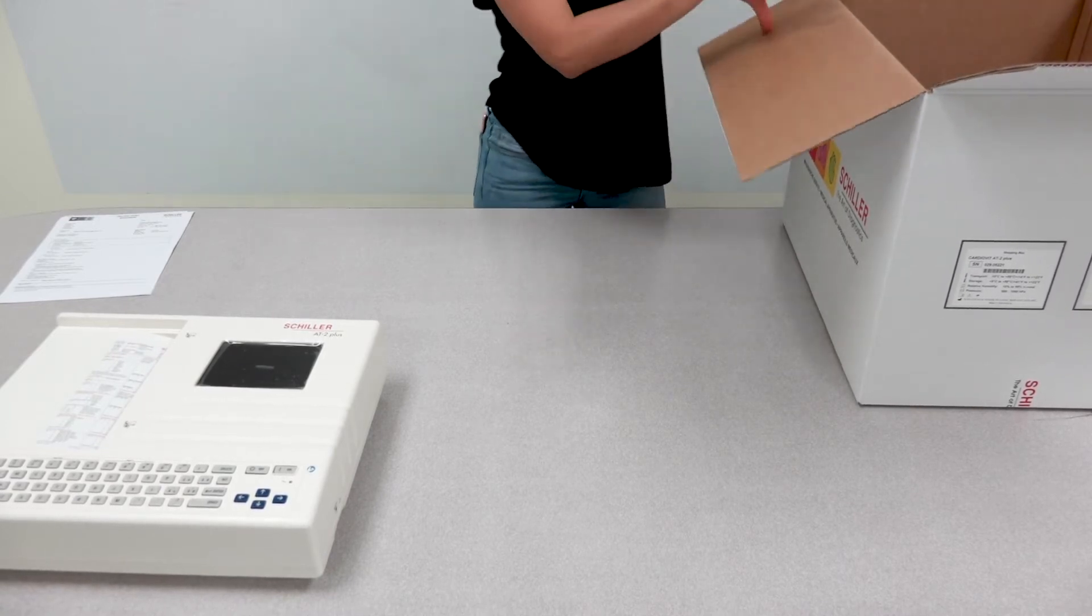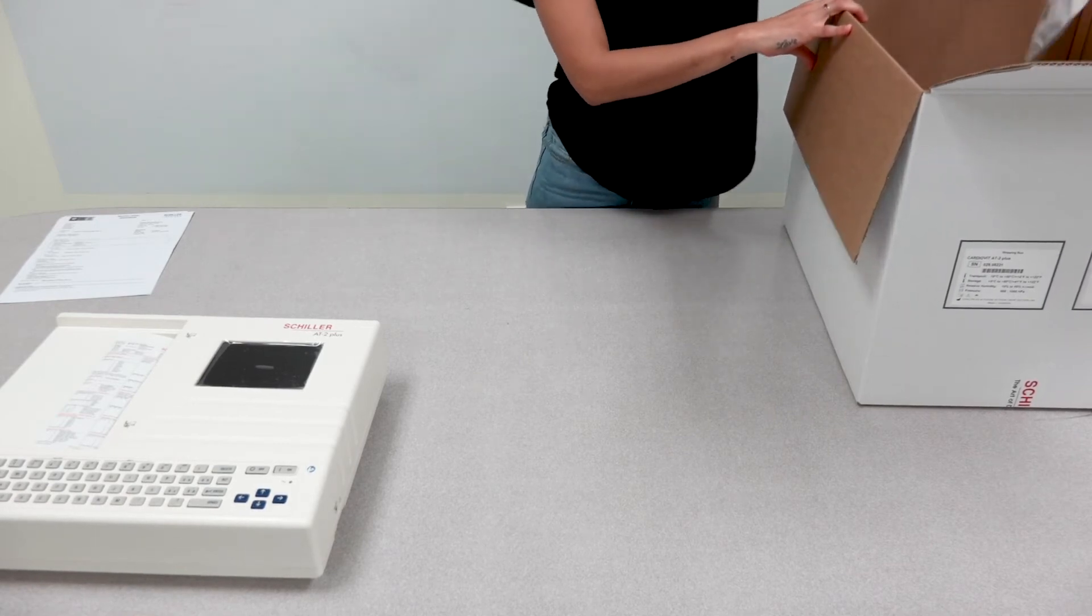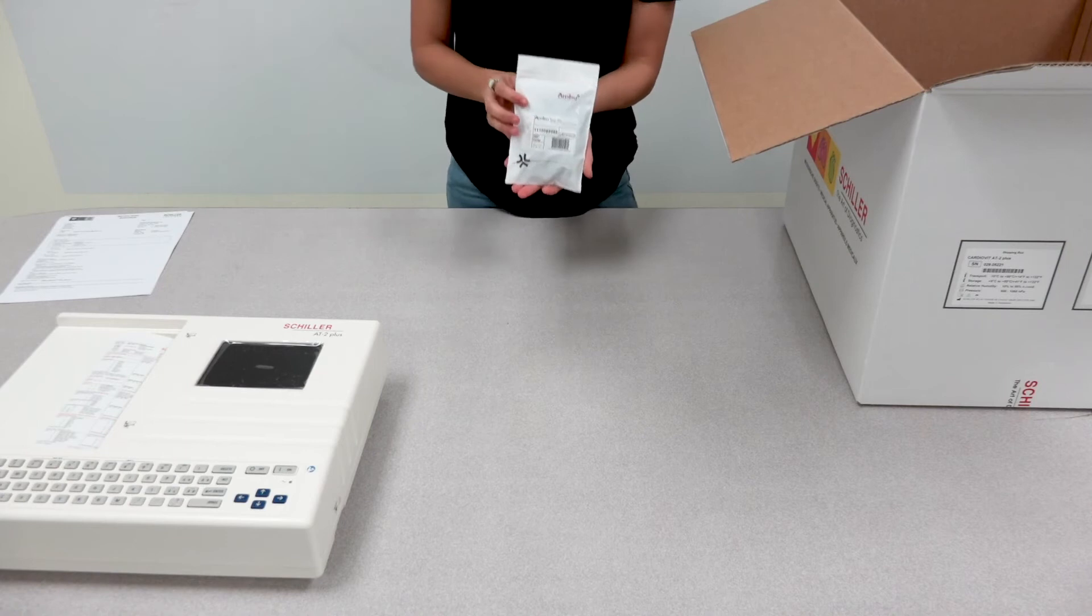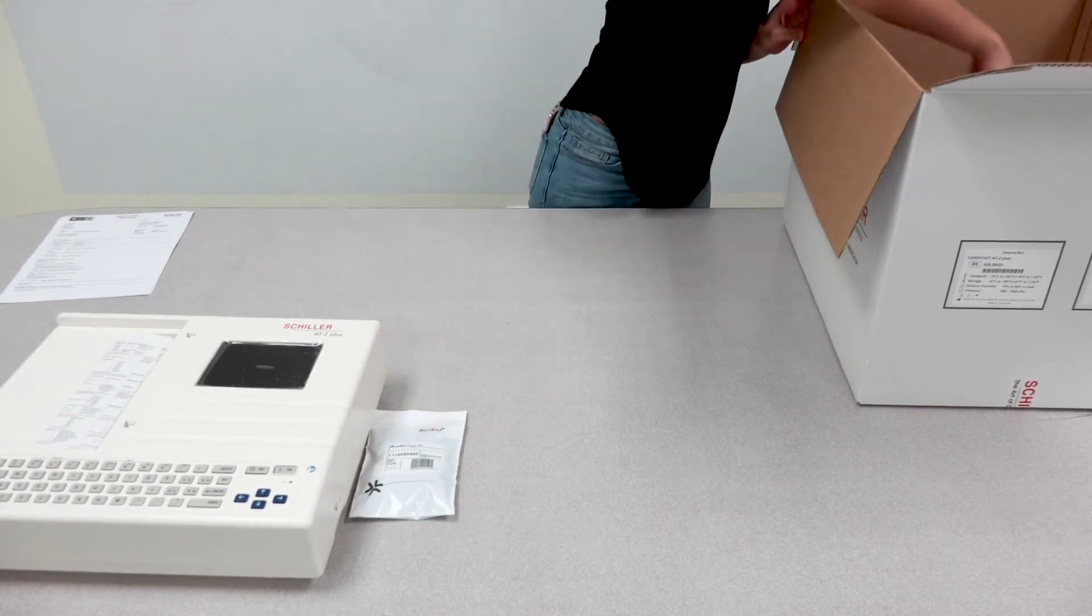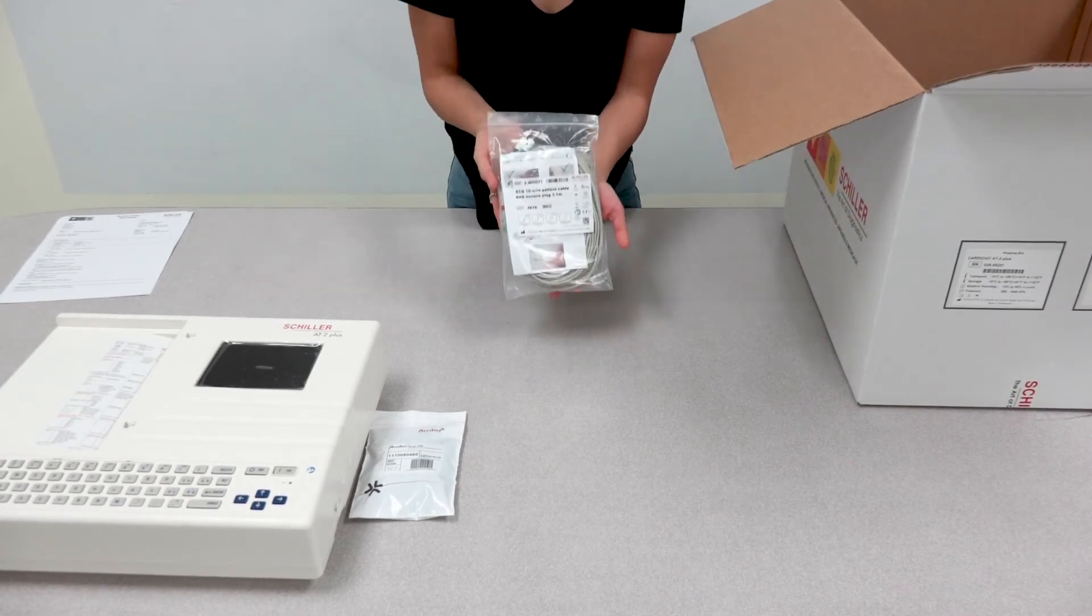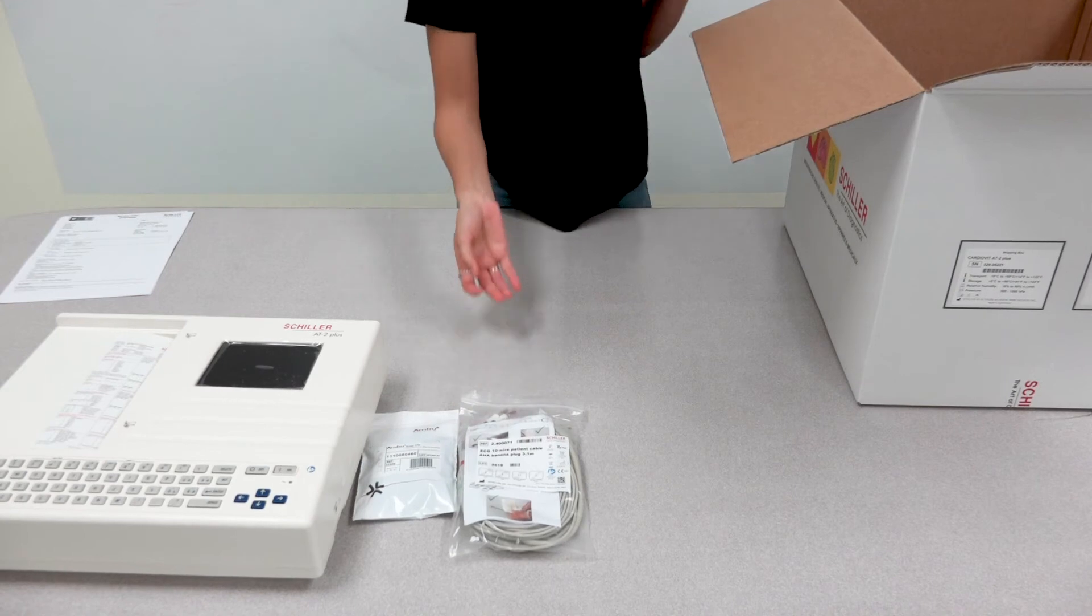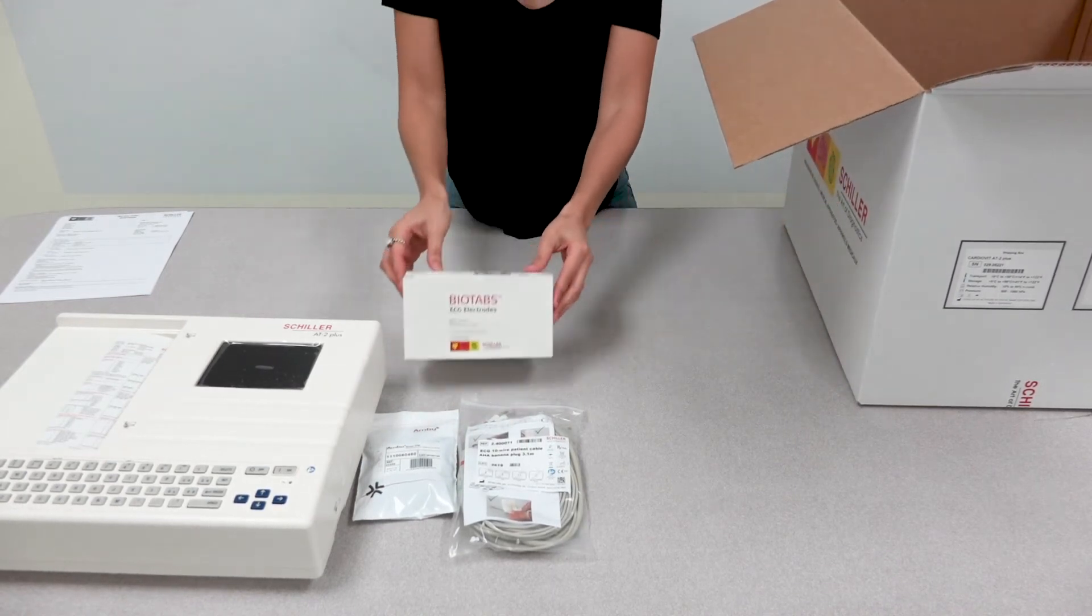Underneath you will find the accessories that come with the unit, which are a pack of 10 snap clip adapters, a 10 lead patient cable, and a pack of 500 electrodes.